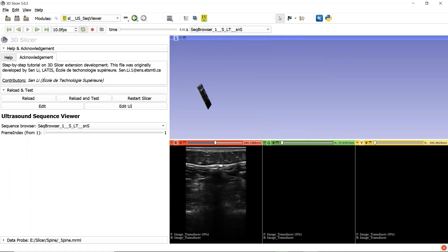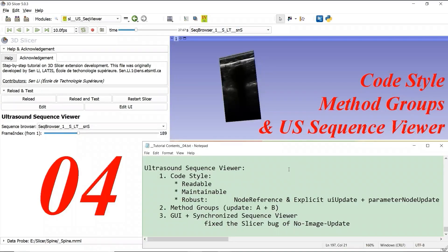Let's make a summary. In this video, our custom module is related with ultrasound sequence data. We want to make our code readable, maintainable, and robust.